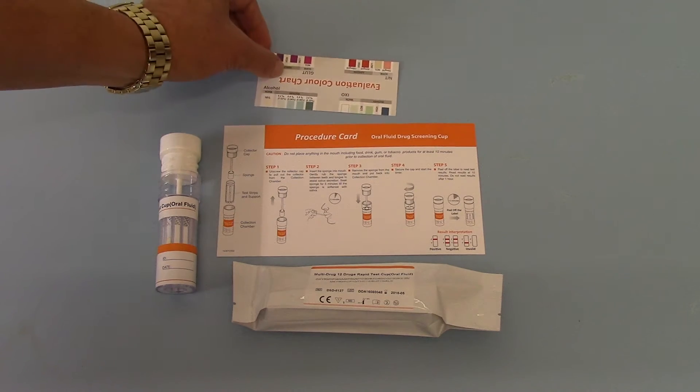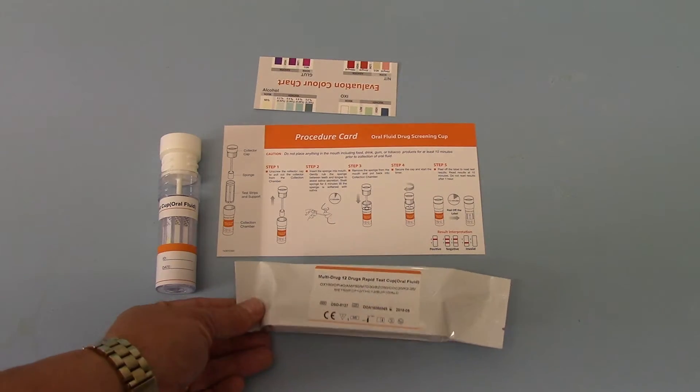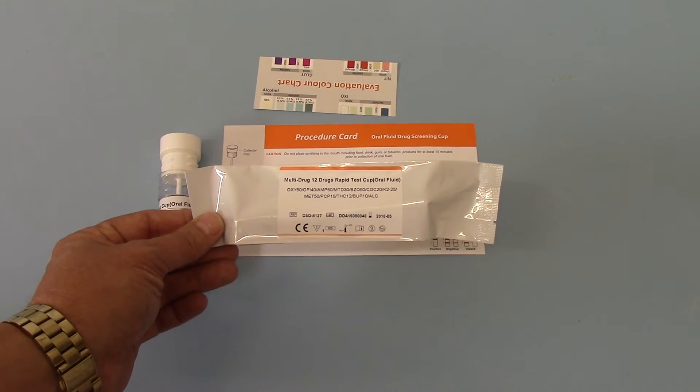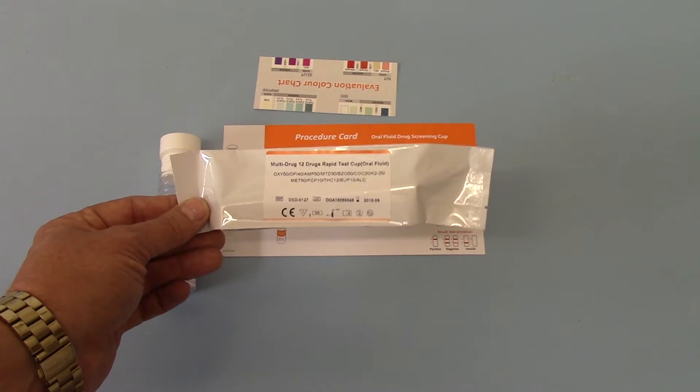So, that's the evaluation card. The test kits, you get 20 of these individually foil-wrapped in a carton. This is the outer of the foil.